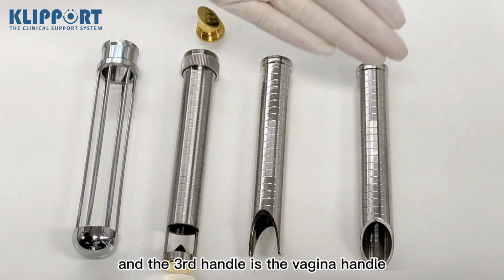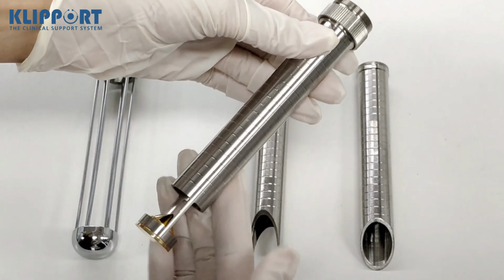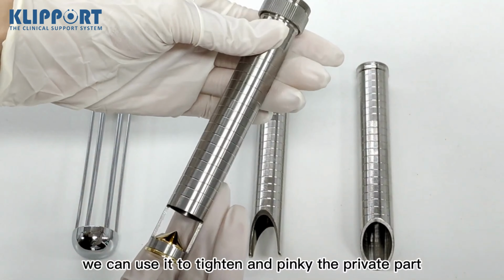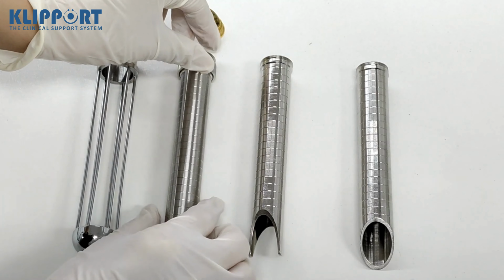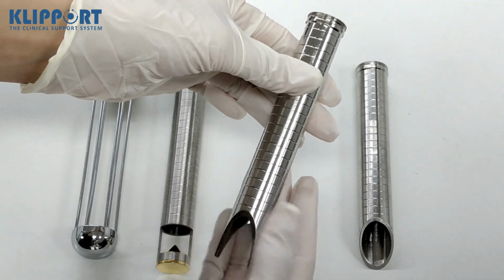And the third handle is the vagina handle. We can use it to tighten and pinken the private part. And it can also do some post-op care.